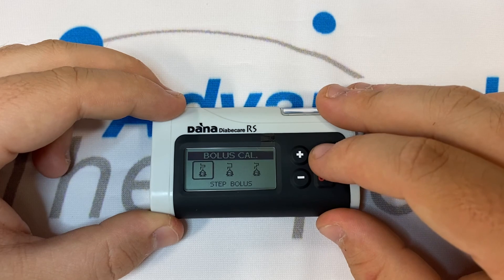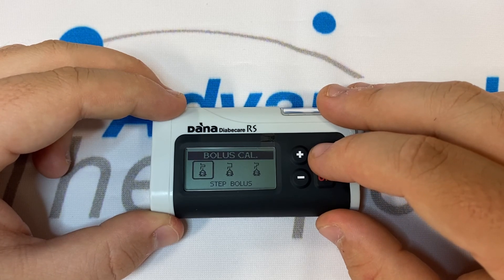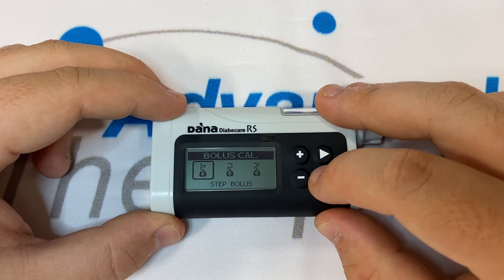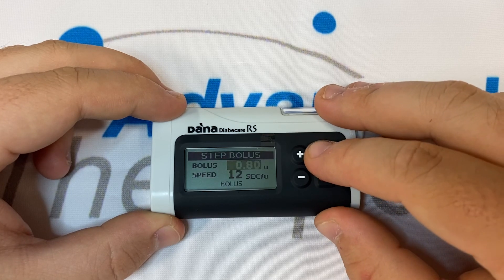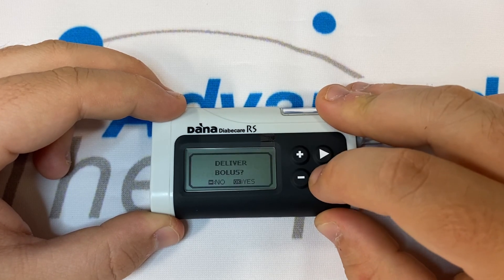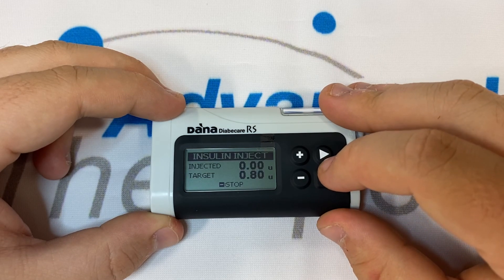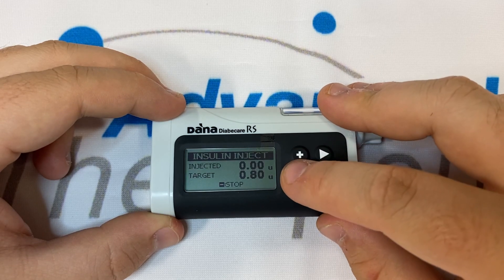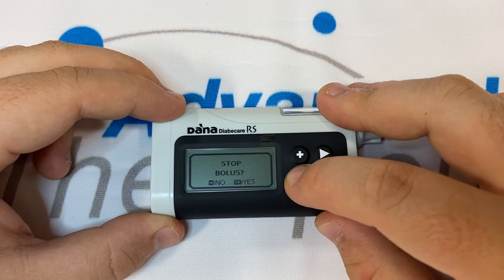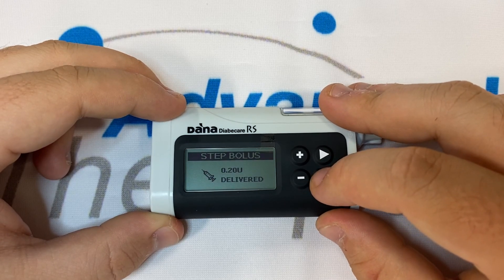Pressing OK will take us through to the same screen where we found ourselves previously, where we may choose the type of bolus we wish to deliver, the speed and the delivery. Again we may press stop at any time to stop the bolus.